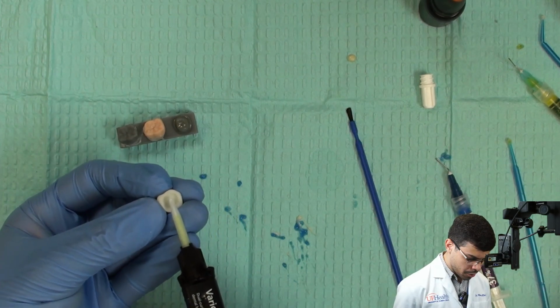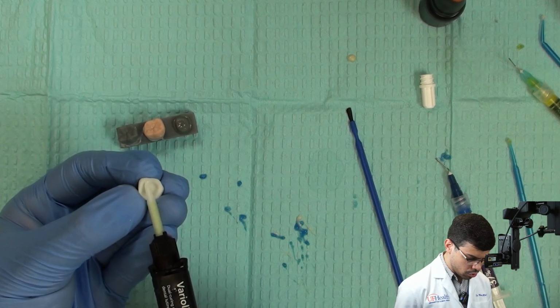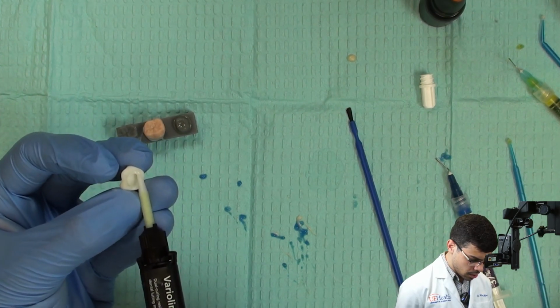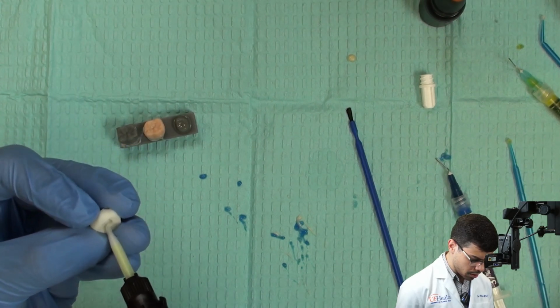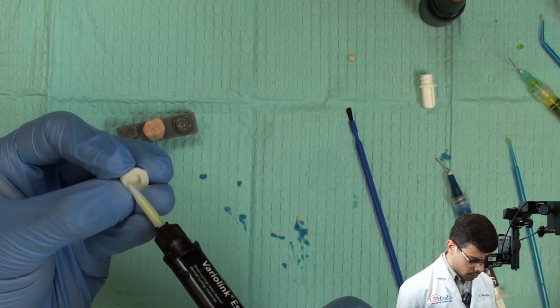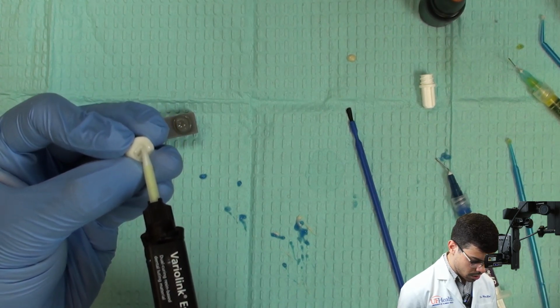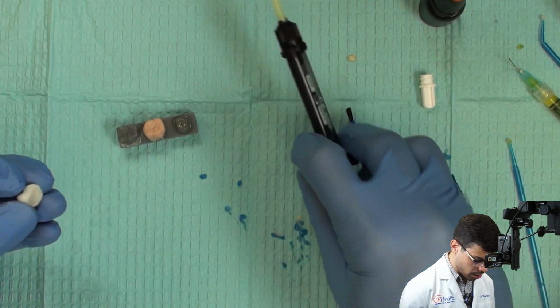And also remember, we are using zirconia here. So with zirconia, you don't necessarily need to use resin cement. You can lute that with a resin modified glass ionomer. So think about the protocol that I'm showing here and think about whether you need a resin cement here or if you need a luting agent. So you can change the protocol a little bit because then you have all the options.